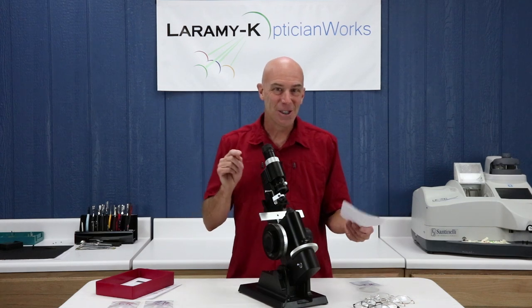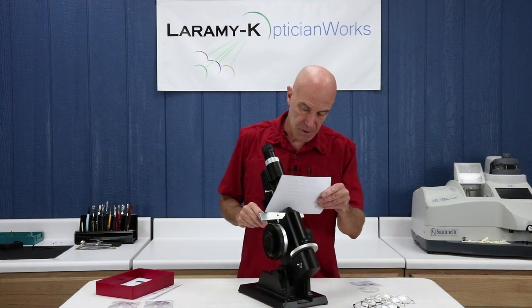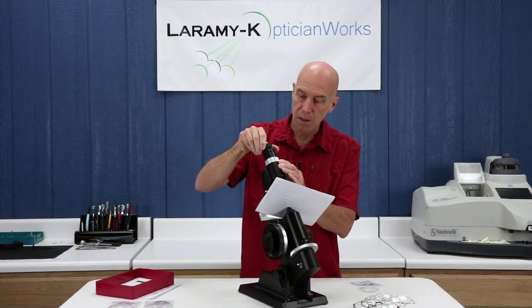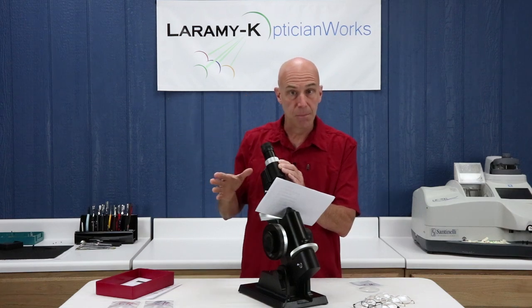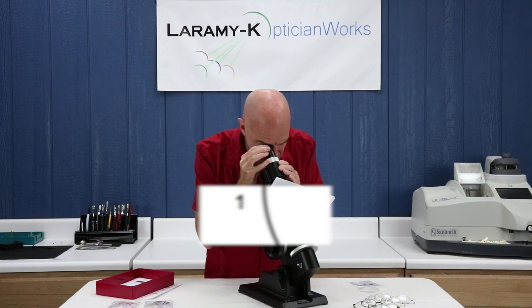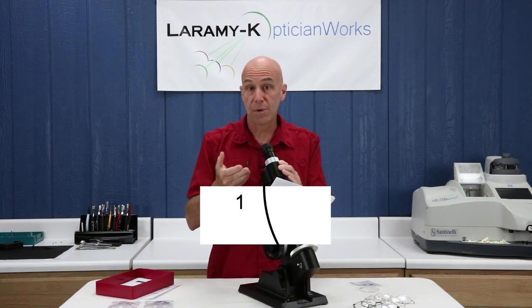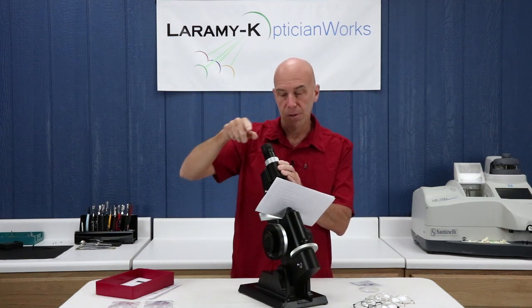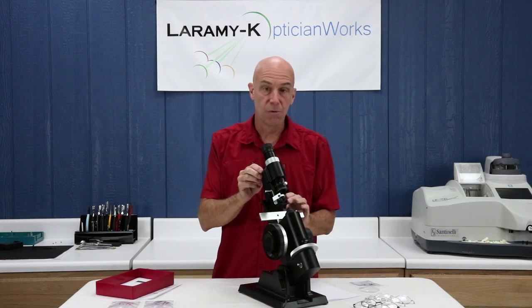So what we're doing right now is adjusting the lens meter for individual use. I have rested my piece of paper against the lens stop. I'm going to take my individual focus knob or focus ring and wind it full counterclockwise until it stops. I'm going to look inside with my eye resting against the eye cup and slowly turn it clockwise until the reticle inside is nice, crisp, and clear. I like using the one prism indicator. I'm only turning clockwise — not rocking. Once that's sharp, I can remove my sheet of white paper.